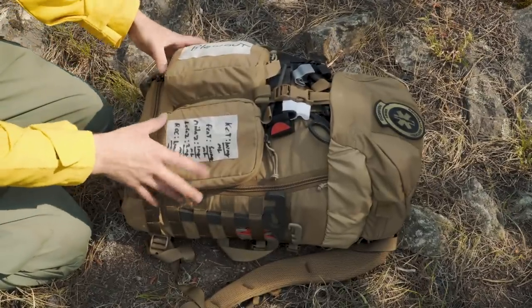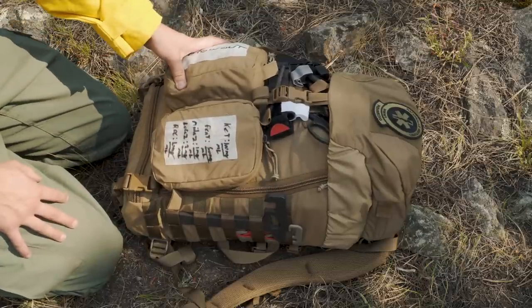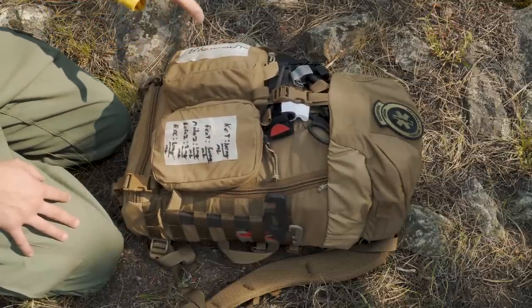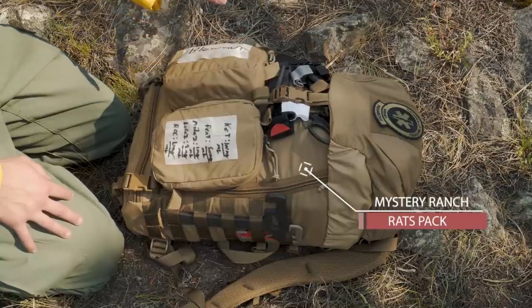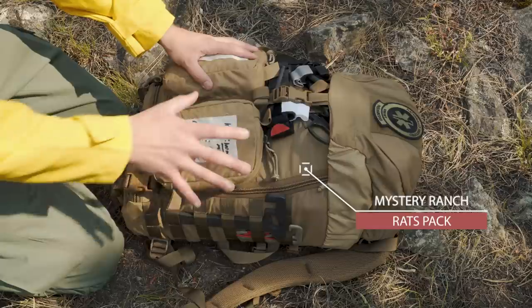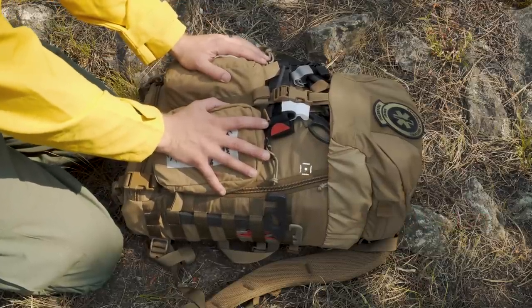I kind of apologize for the weird angle of this video. Obviously I do not have my usual filming setup and I'm still not sure how I'm going to upload these with the Wi-Fi we have out here. So we'll see if this gets up in good time. Going over this pack, on the outside you'll see a couple of changes I made.